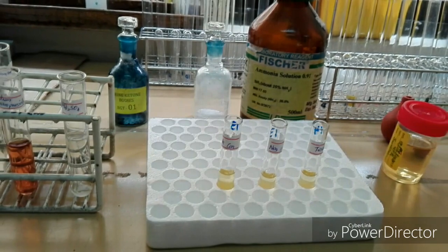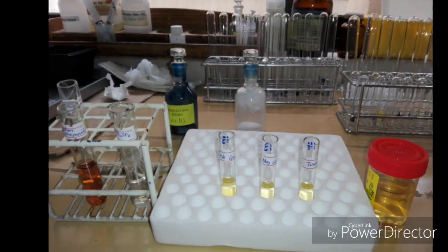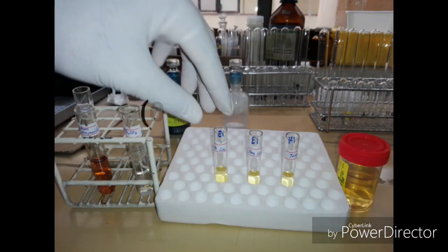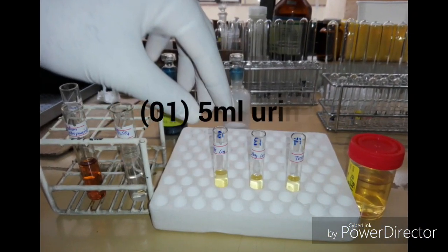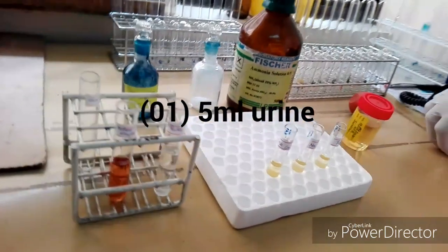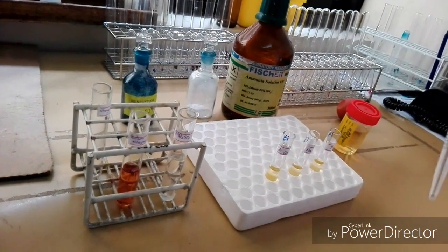Then, nearly 5 ml of urine sample should be added in each labeled test tube. That means positive to positive, negative to negative, and test to test.